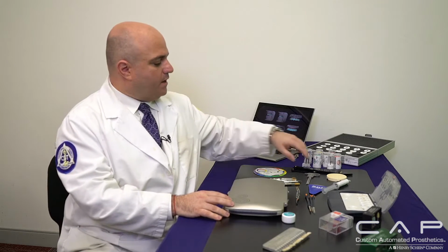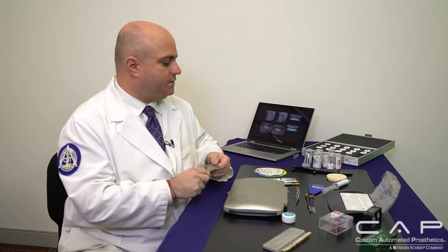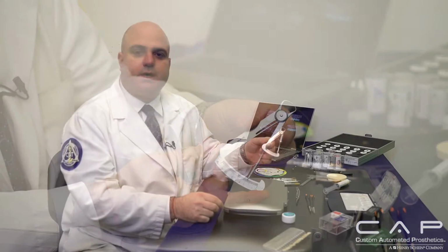As far as what we do here at the bench, once everything is milled, whether it's a lithium disilicate or zirconia or whatever have you, these are the tools that I have on my bench in order to achieve the best final outcome for the patient. So first, I'm very much a creature of measurements and assessment in order to, within the parameters, be able to achieve the best artistry. So I do abide by the golden rule of proportion. As you see here on my bench, I have several measurements. So again, we have a Boley gauge in order to measure exactly the width and the length of teeth, as well as the gauge to make sure that I'm in proper measurement where oftentimes we're limited with space. So how do you truly know how much to grind or how much to eliminate, excuse me, in order to be able to provide the best outcome.